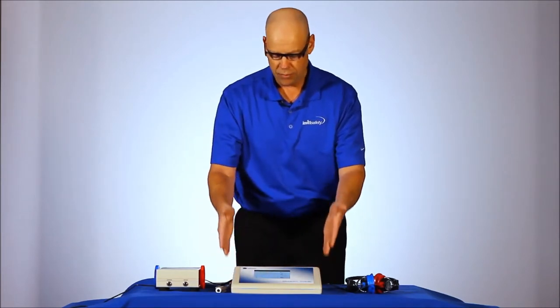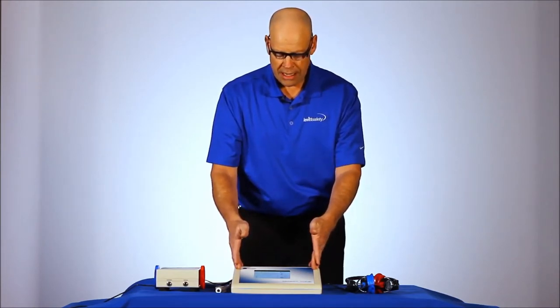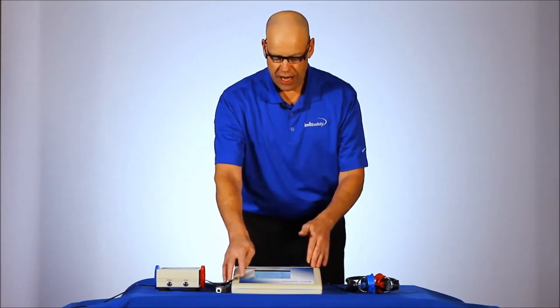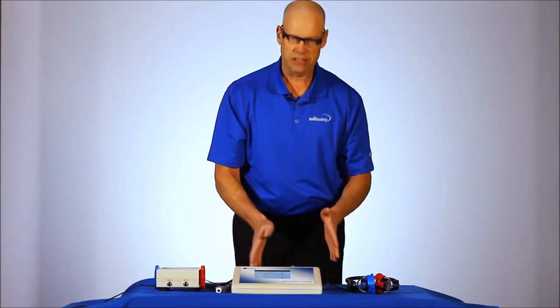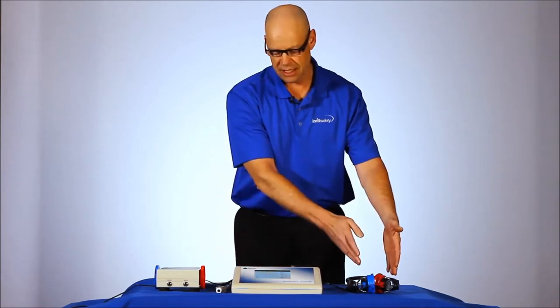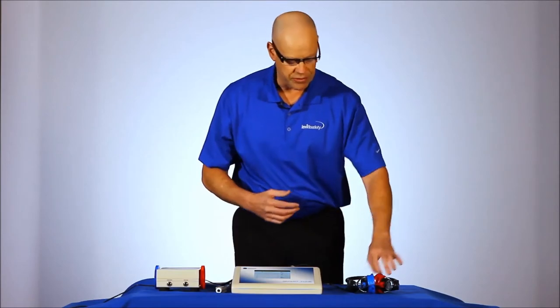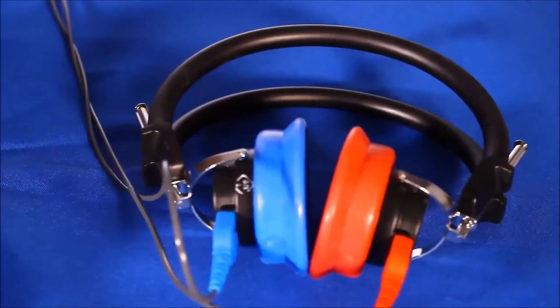In the unit, you can store up to 300 completed tests. It also will provide a talk-over feature if you need to pause the test for any reason, whether you're connected to a sound booth or generally speaking, there is full talk-over into the headset of the device. Standard with each device is a TDH39 headset and a patient response button.